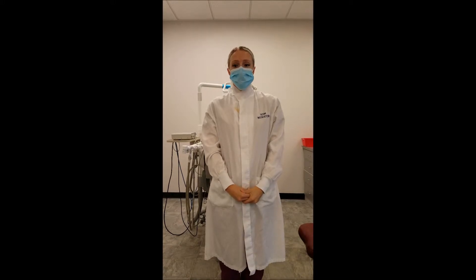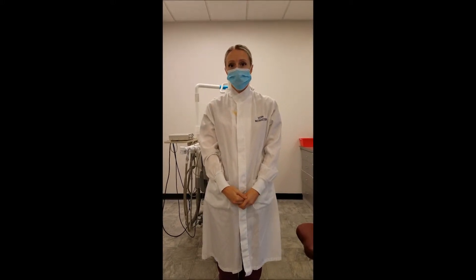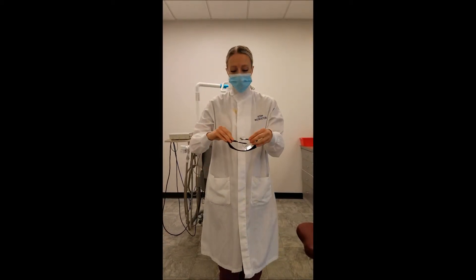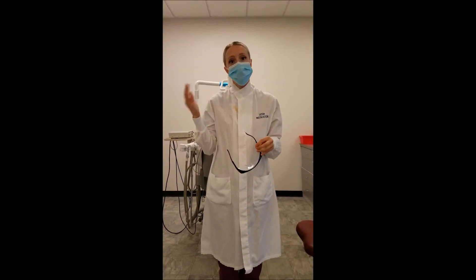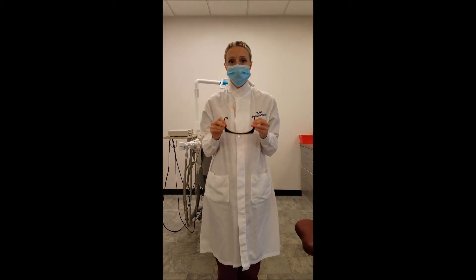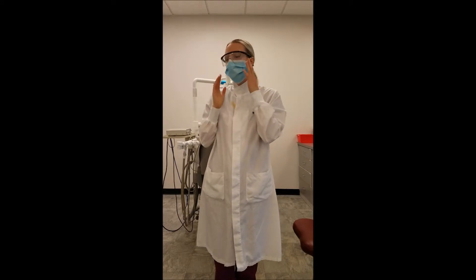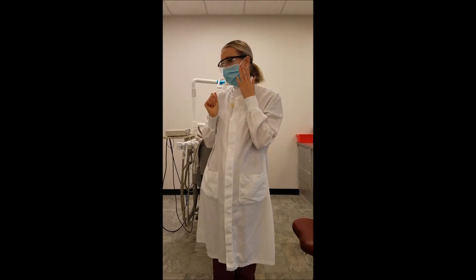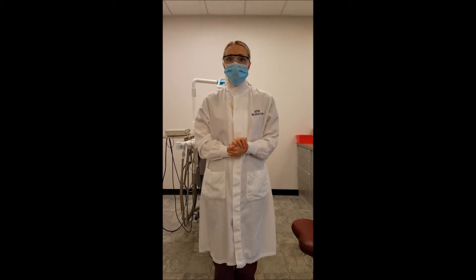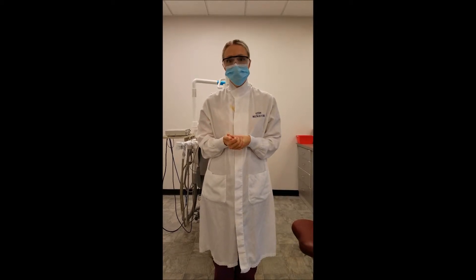Identify and demonstrate the proper use of operator protective eyewear. We place eyewear after the mask and before the gloves. It must be worn in all intraoral procedures and should have wide coverage including side shields to avoid splatter in the eyes. Patients should also be provided with the same protective eyewear.